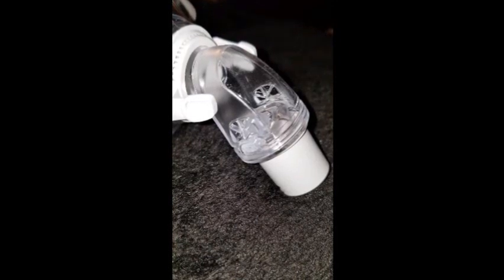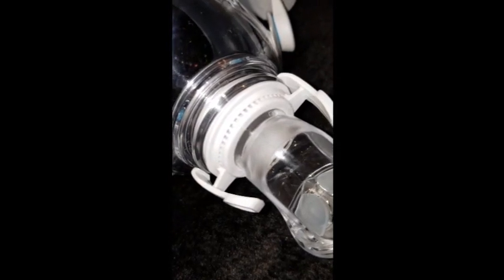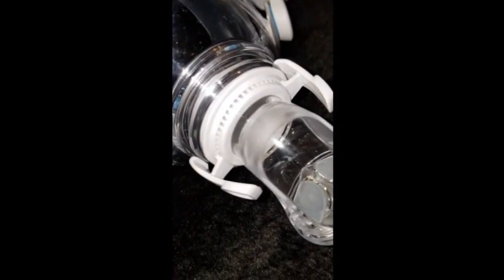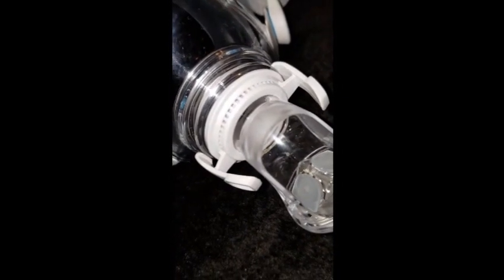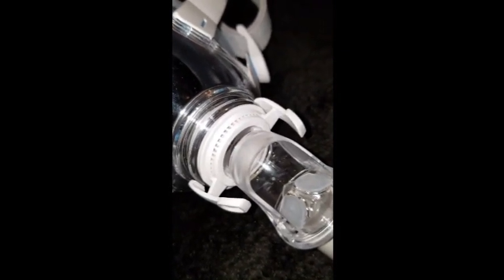Here's a really good shot of the exhalation ports so you can see where you breathe out CO2. Notice they have this little windowpane pattern — that will hot glue a lot easier with those there. We want to seal those ports up. Also, when you take off the flaps, you'll get a new little hole where the flaps connect into the mask, and we want to seal those up with hot glue as well. These diffused exhalation ports are for CPAP use, but for our purposes we want to hot glue these little holes so no air can come in and infect you.